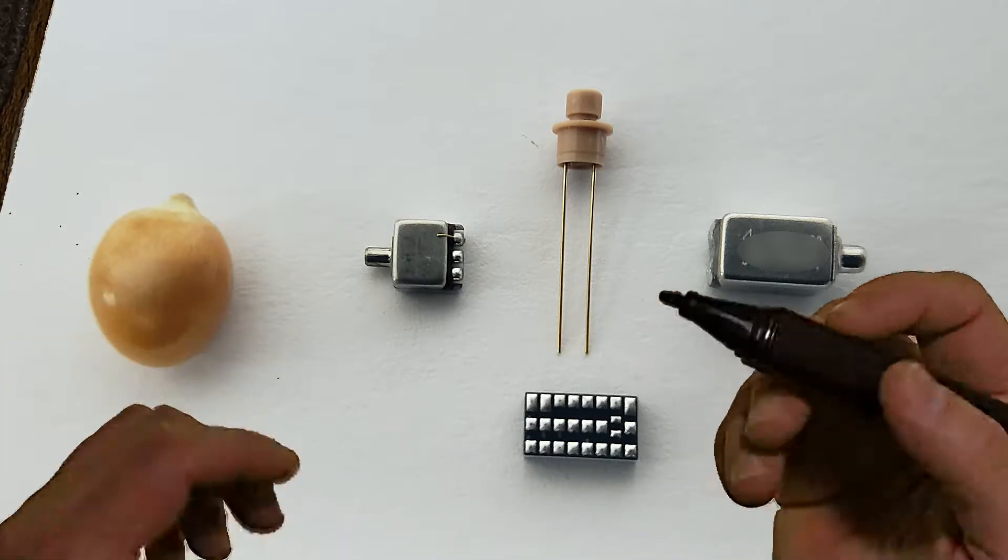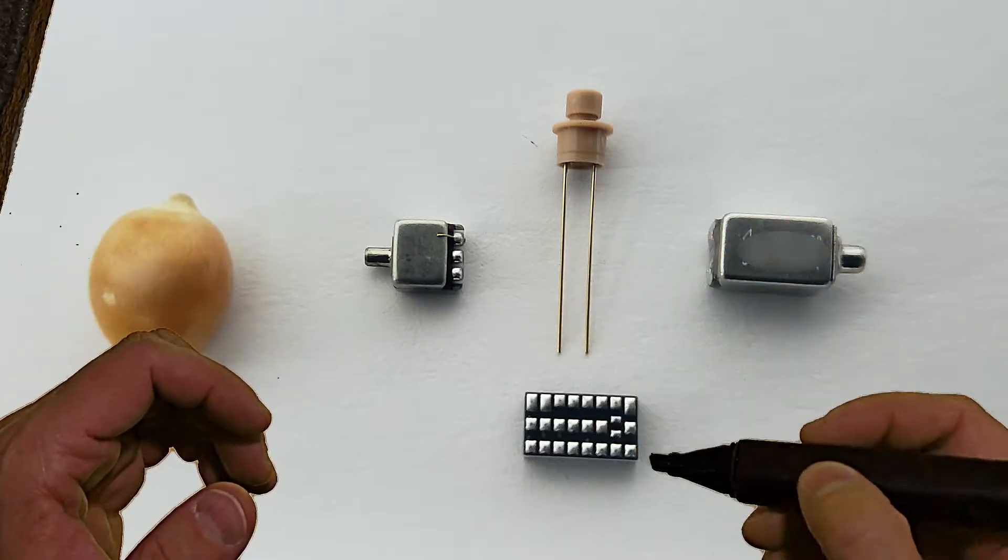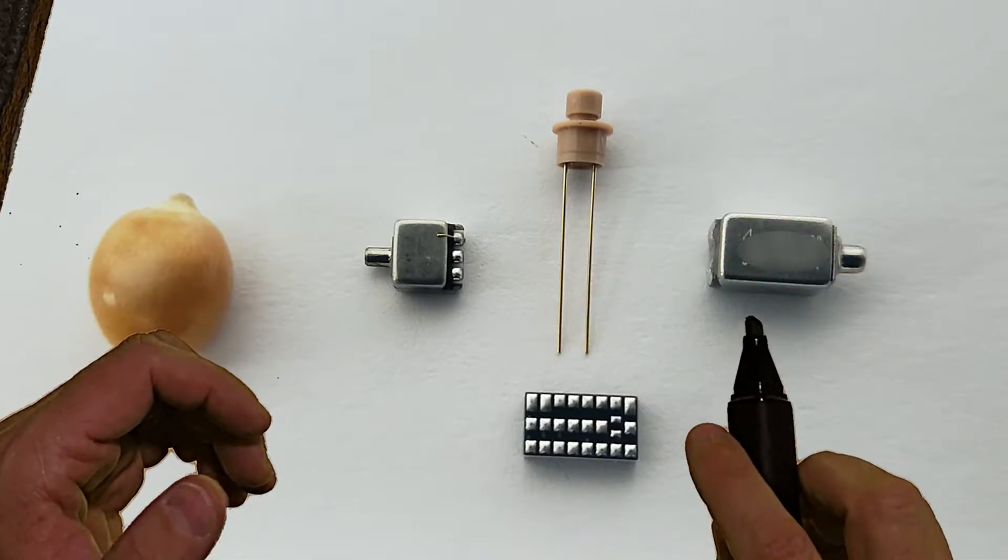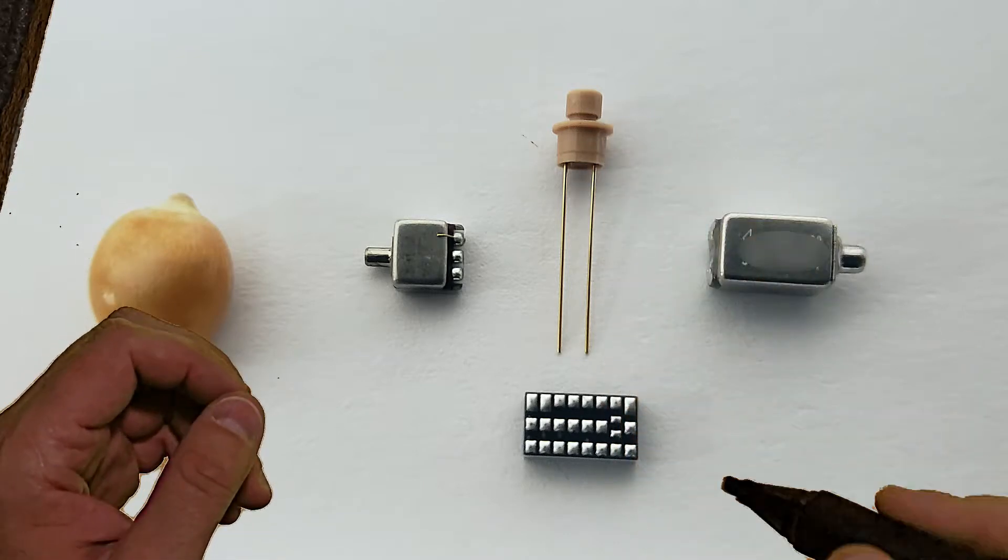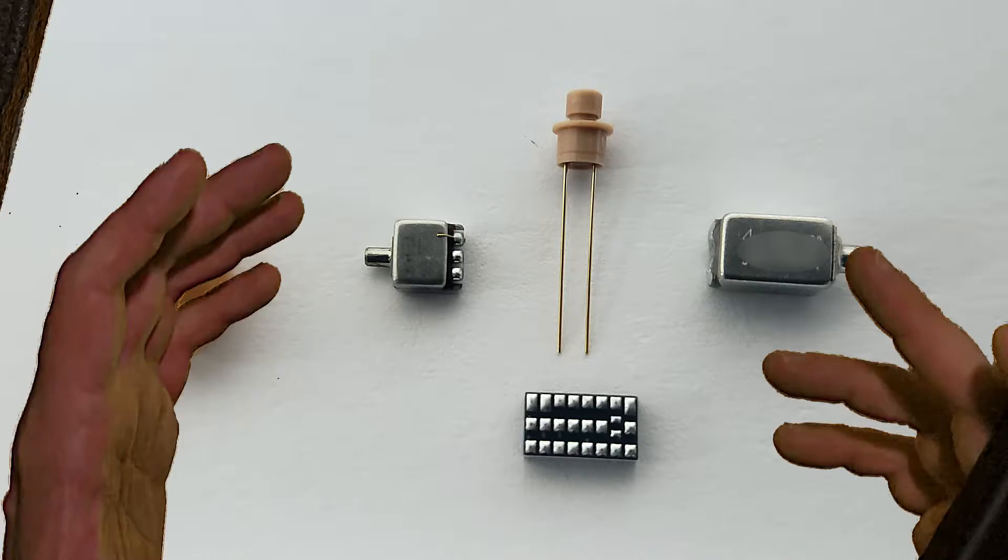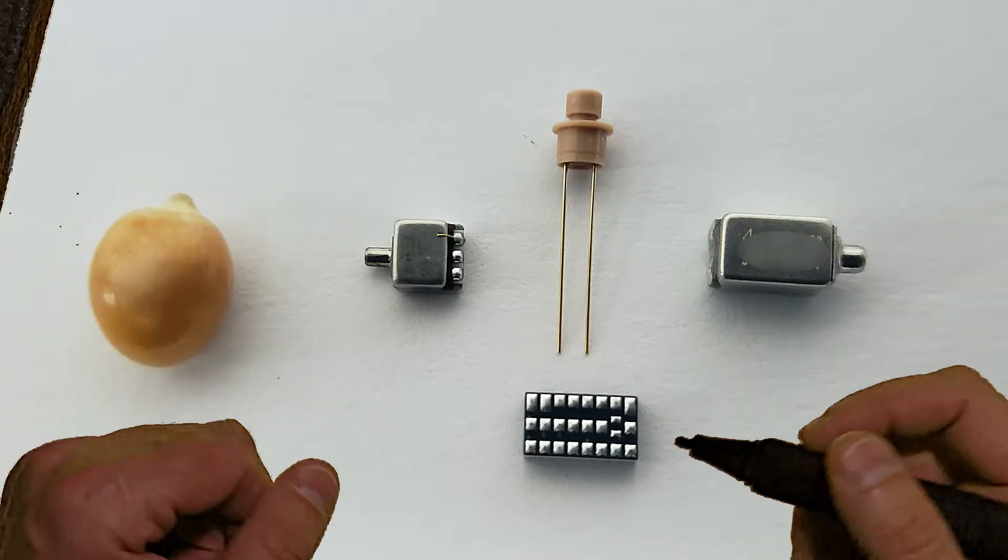On average, at the very least, you'll have a microphone, a microchip, and then a receiver or speaker of some sort. You may also have a control, a push button, or a volume knob to adjust the sound that the hearing aid is producing.